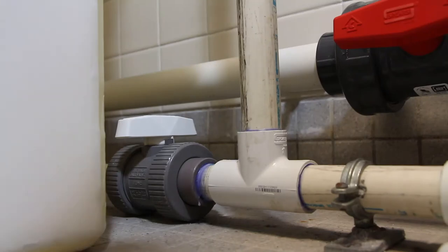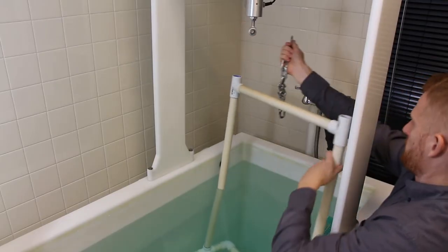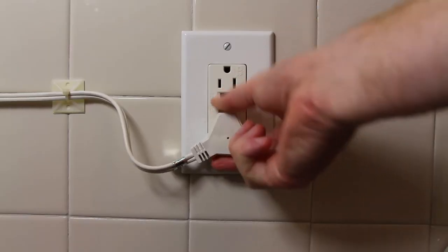When you're all done with all your measurements, simply drain the tank, remove the chair and place it off to the side so it's not pulling down on the load cell, and then unplug the measuring device so it's not on after you're finished.